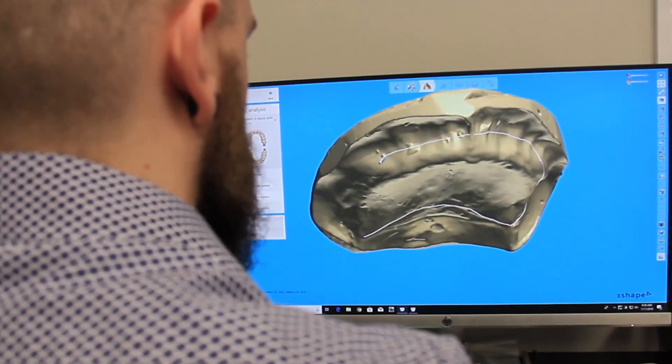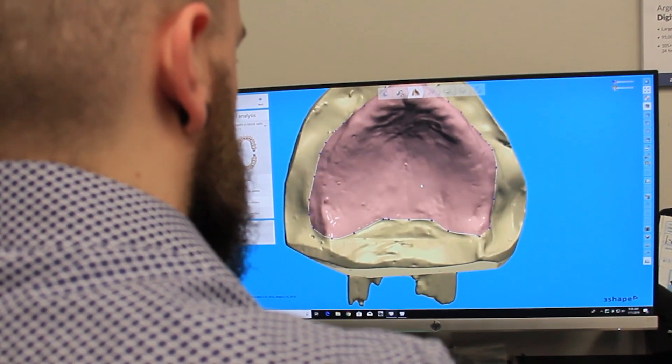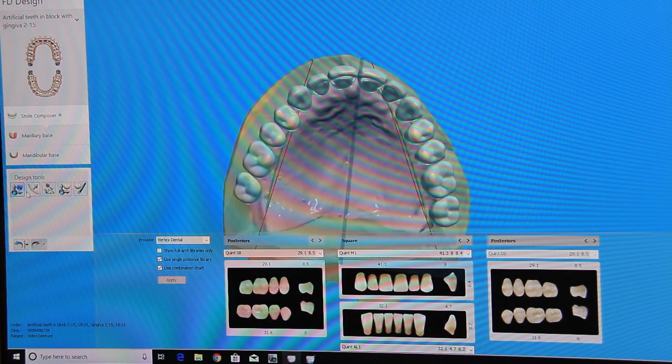Now, the process of digitally designing the denture can begin. Using specialized software, the designer will make sure that all the teeth will mesh together comfortably and naturally in the mouth.